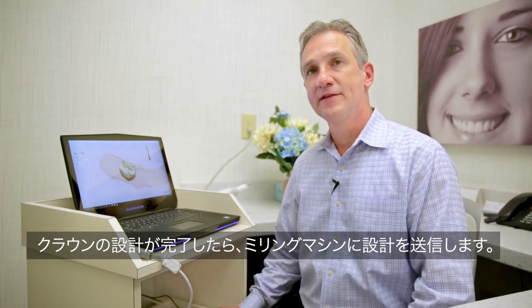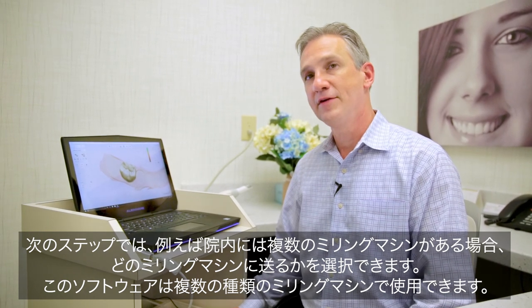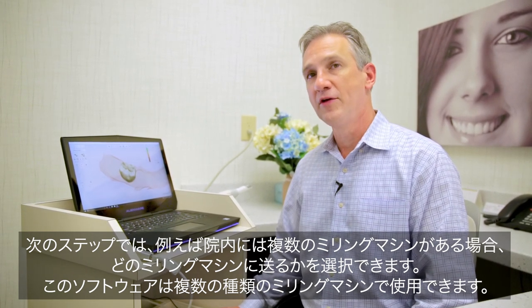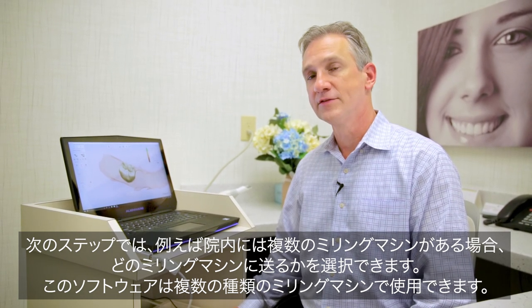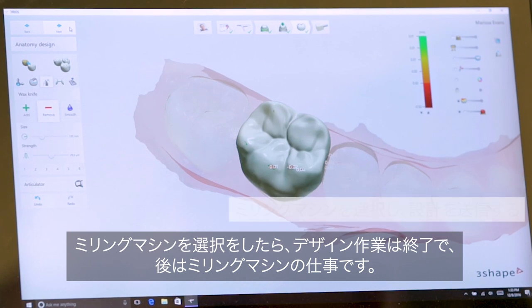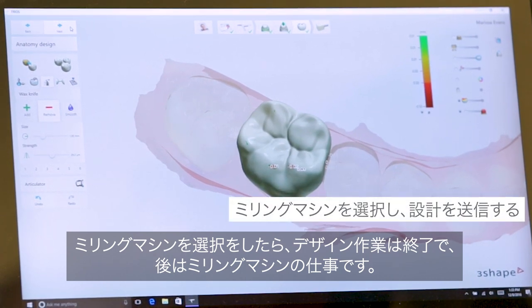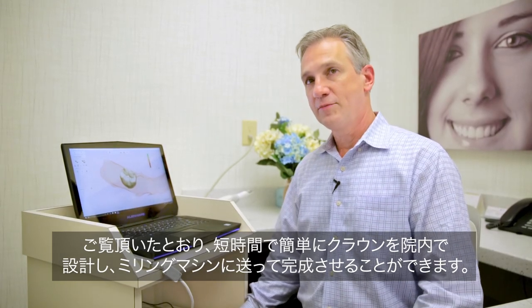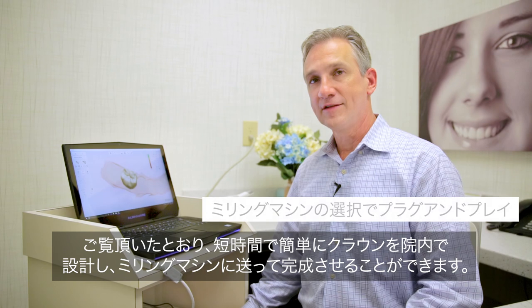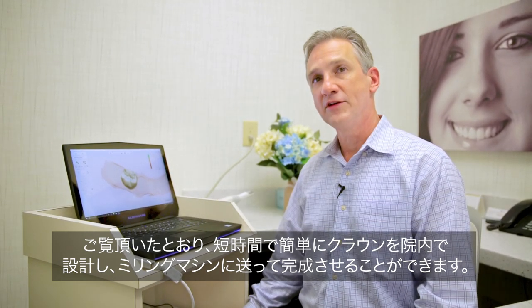Once your crown is designed, the next step is sending it to your mill. When you hit the next step, you can choose which mill it goes to if you have multiple mills in your office, and it does support multiple mills. Once that's done, you're complete — done with your design and the rest is just up to the mill. As you can see, in a short period of time you could easily design a crown in-house and send it to your mill for completion.